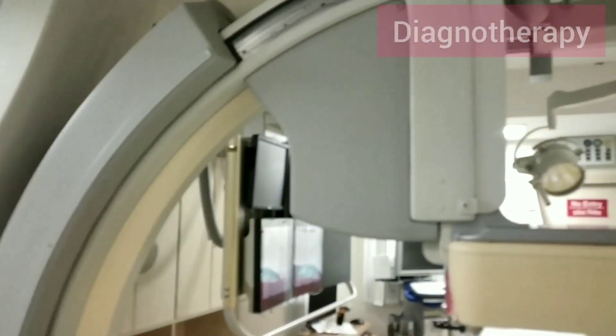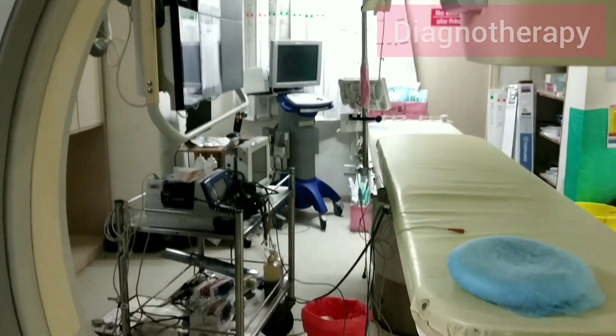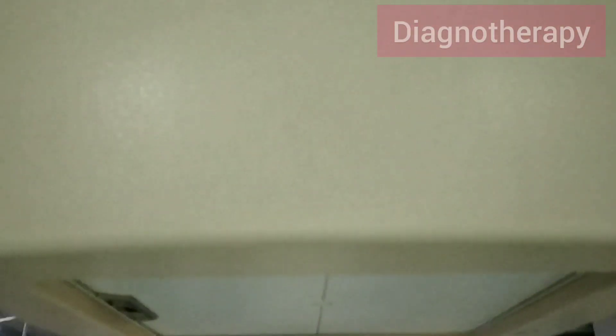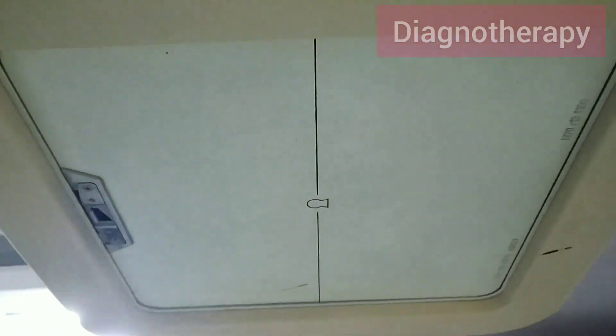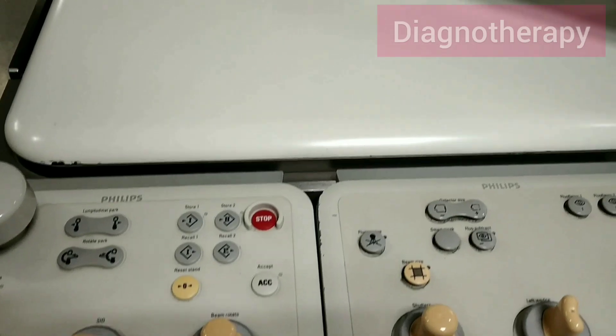All things are inspected. This is the flat panel detector, so we need to observe this also carefully. This is the keypad commands, and on the right you can see the display — it's a touchscreen display.